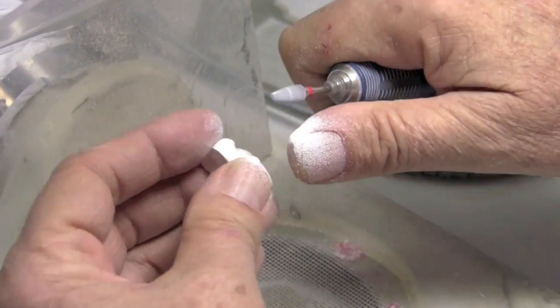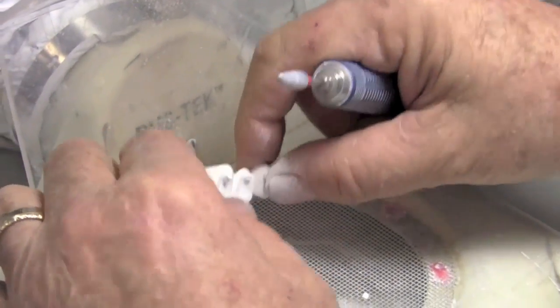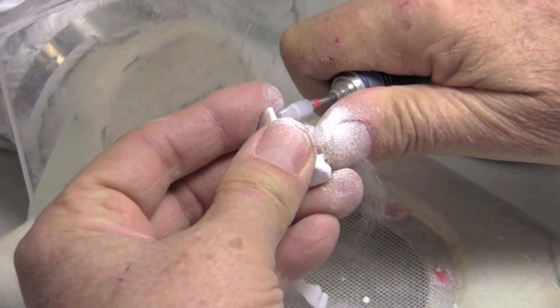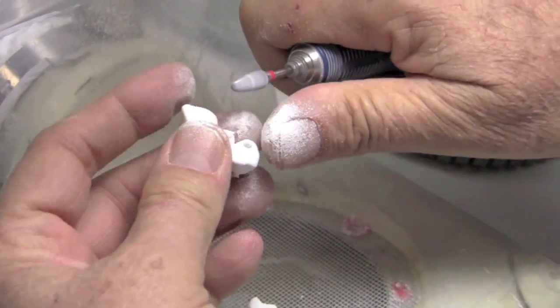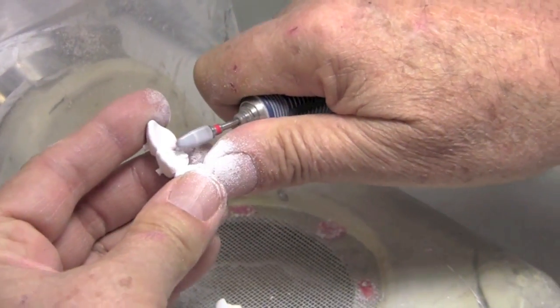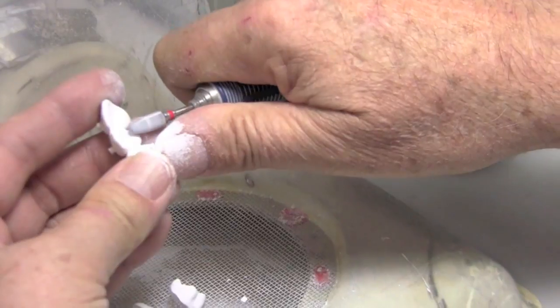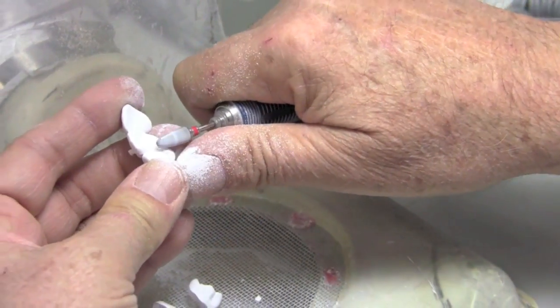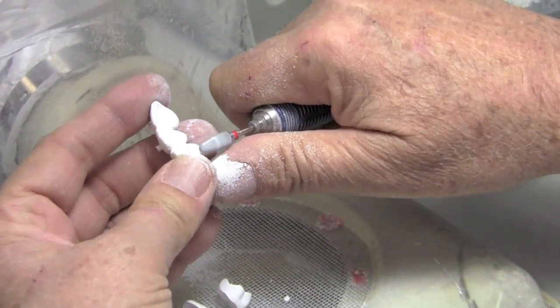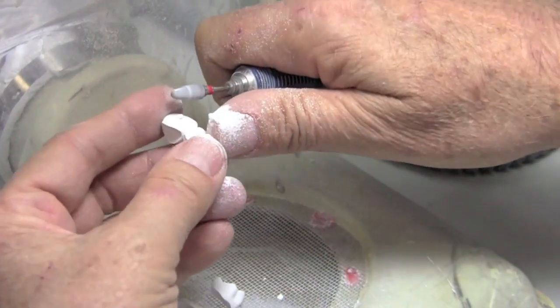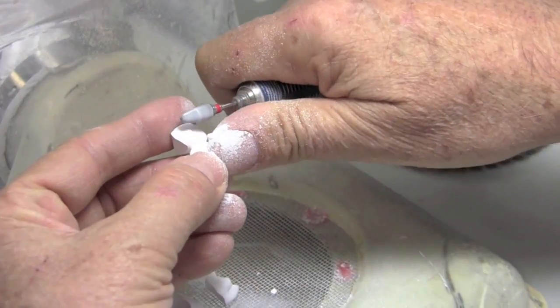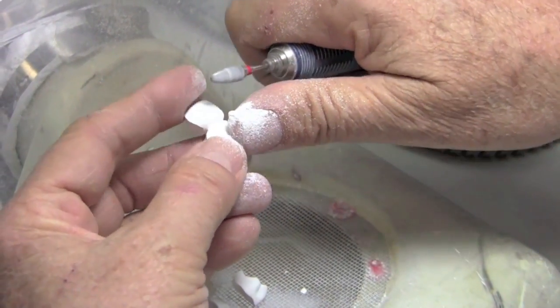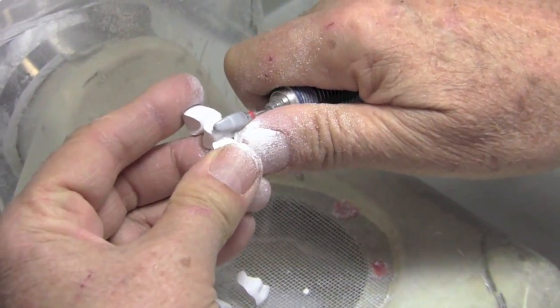It's a little better, but since I'm going to go over the surface anyway with my green state finishing tools from Wagner, I find that it just really is not worth the extra time to mill in high quality. It doesn't save me anything really when I'm finishing. And so we've really kind of abandoned that and gone back to milling in standard mode, which is much faster. And then achieving the smooth surface we want in the green state finishing since we're going to be doing this anyway.